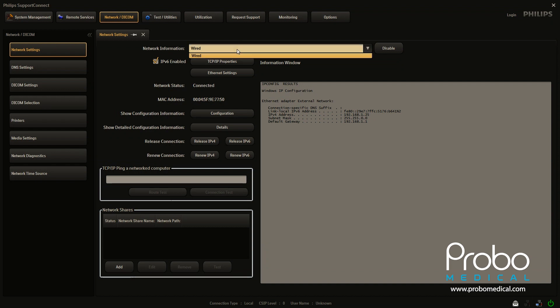If you had that option, you could click that and enter the same similar information. You'll also need your network key and all that kind of thing for wireless. But that's pretty obvious once you get in there.